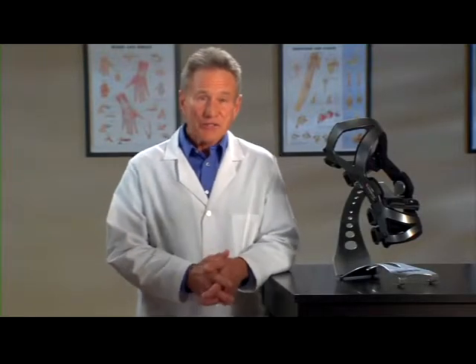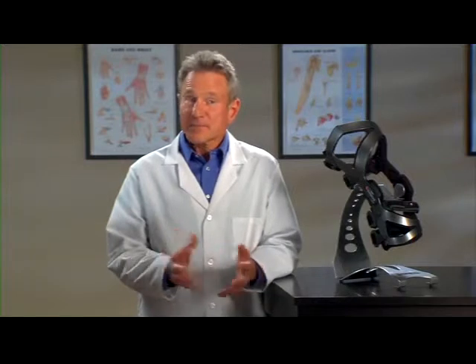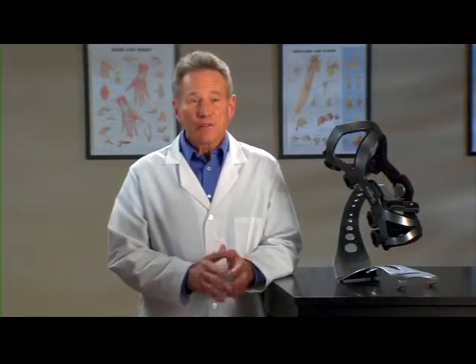The LPR was also selected for you because of its comfort and fit. This is important because a brace can provide you with protection, but if it isn't comfortable you're not going to wear it, right? LPR is one of the most comfortable yet rigid braces available.